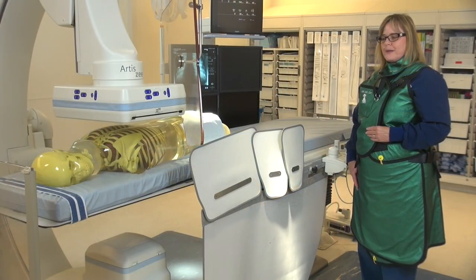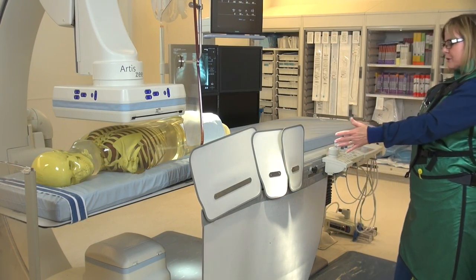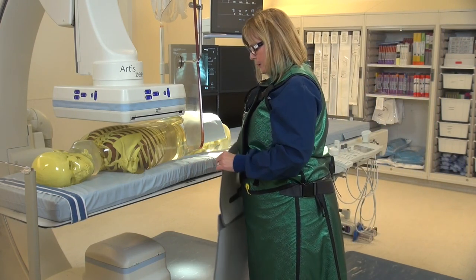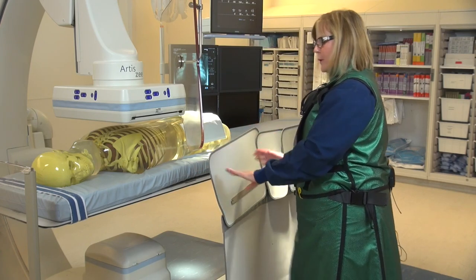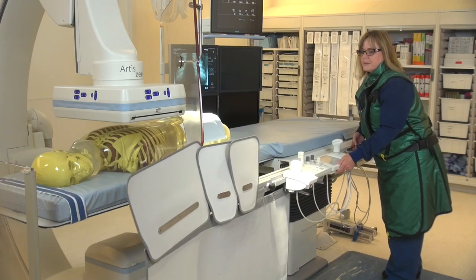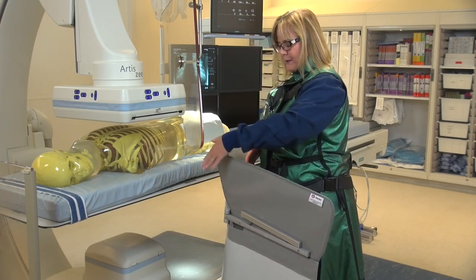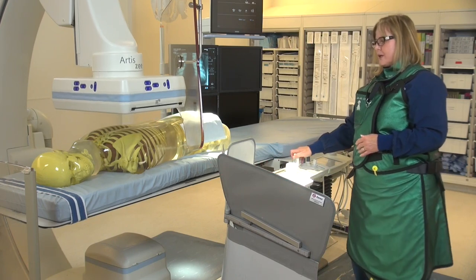In the cath lab, it's important that we use proper shielding during imaging. A lot of times what we want to do is leave our shielding back towards the end of the table — which protects the technologist — but unfortunately the physician will be standing closer to the x-ray tube. So we want to make sure we move the shielding up to cover the physician. In cardiac imaging, the shielding is meant to bend around the patient or physician so that we're able to protect when using such steep angles during cardiac imaging.